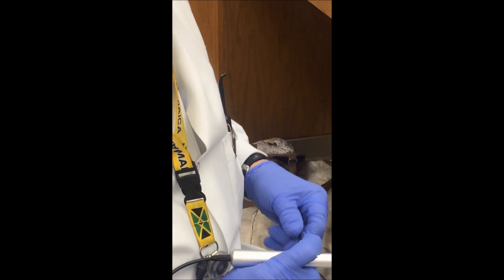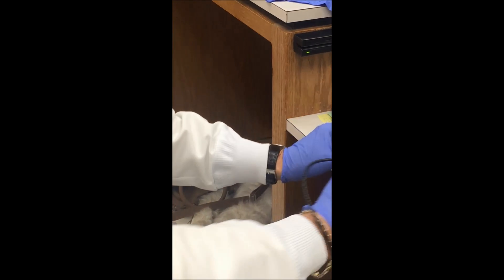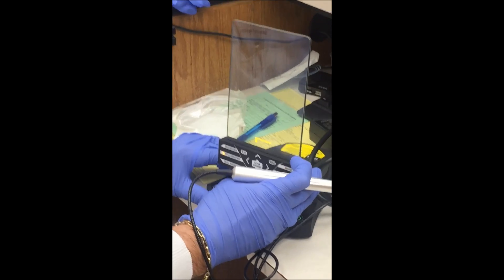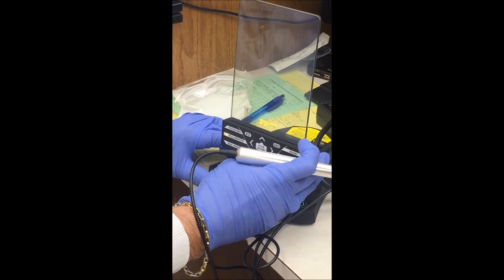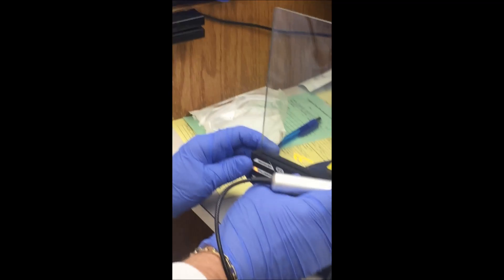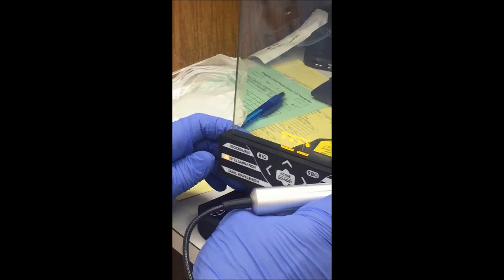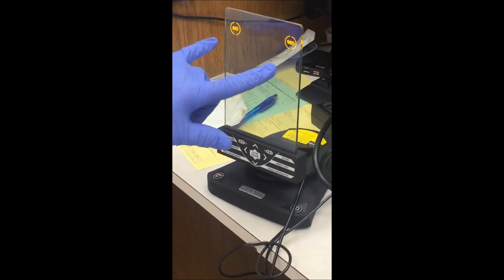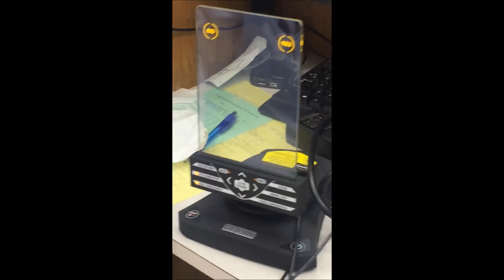We'll turn it on — it takes a second to get going. Our passcode is up, down, up, down. The password is correct and we can see both wavelengths displayed here.